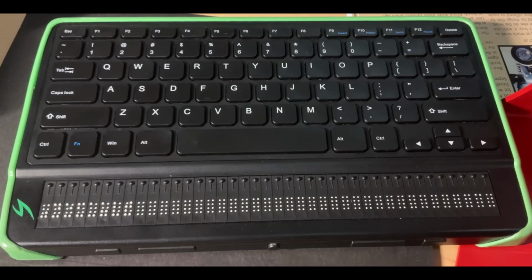But before we do, I just want to give you a heads up that this video will assume familiarity with the machine. So it assumes that you know where the next thumb key is, the enter, what cursor routing keys are, and all of that kind of thing. So just to reinforce that, that's not going to be something that we're going to deal with too much today. It's just the process.